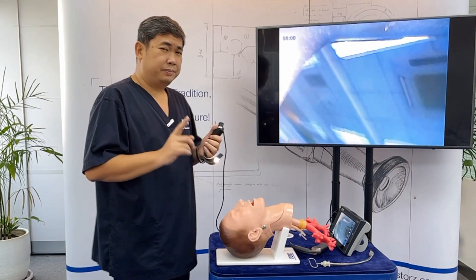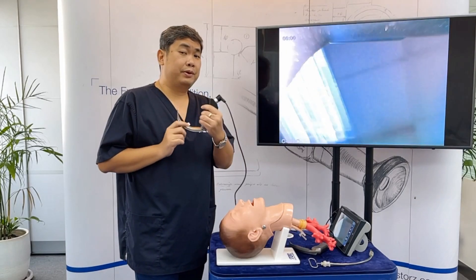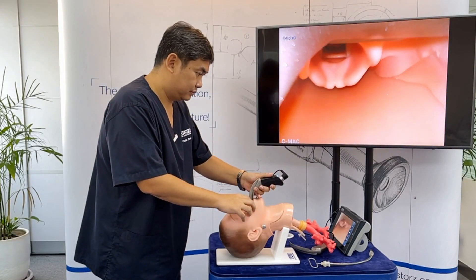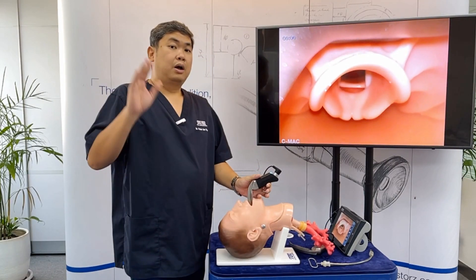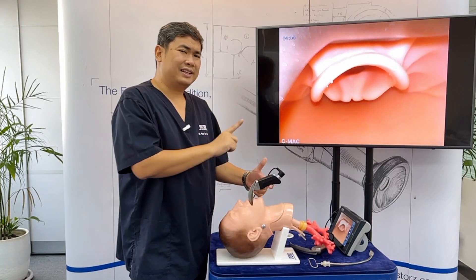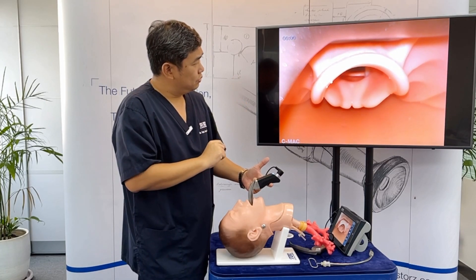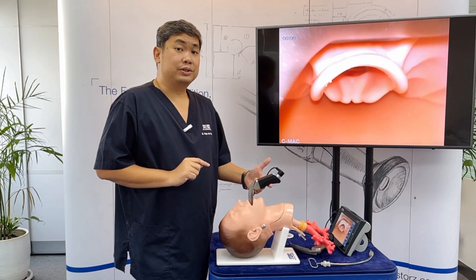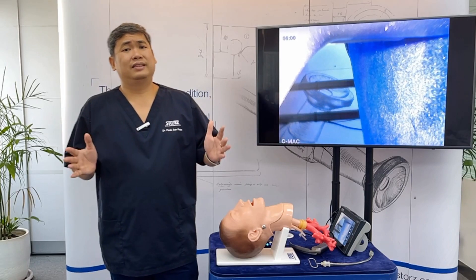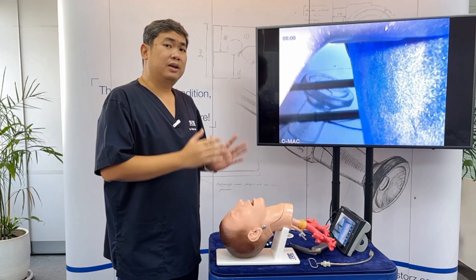Next, ask the participant to perform video laryngoscopy using a hyper-angulated blade. Once the blade is in position, ask the participant to relax their hand and illustrate that you can maintain the view with minimal force. This is the next advantage of video laryngoscopy — it doesn't take a lot of force to get a good view.